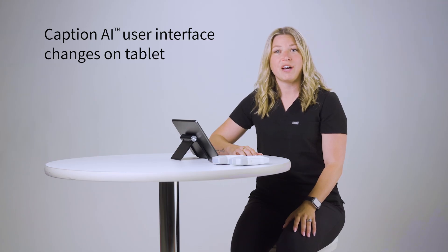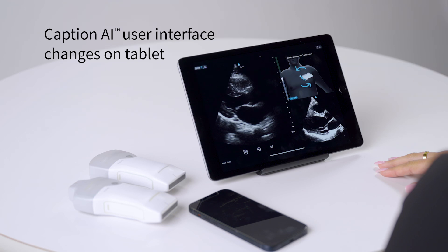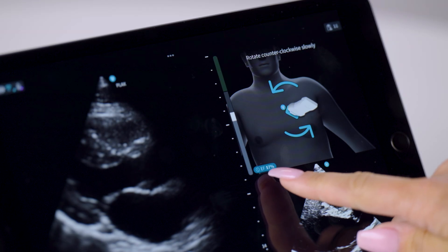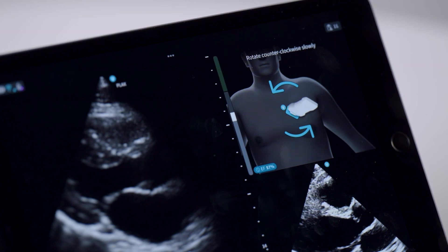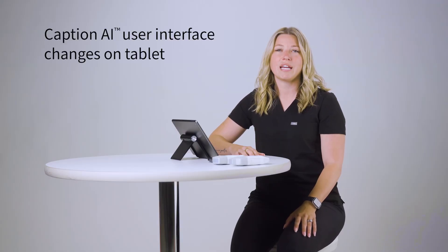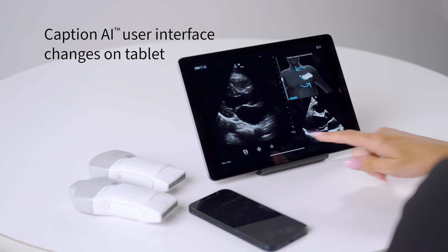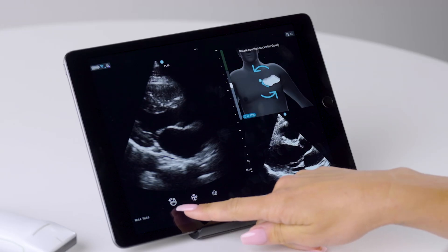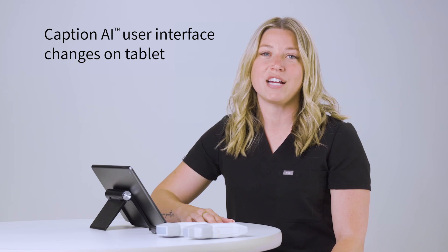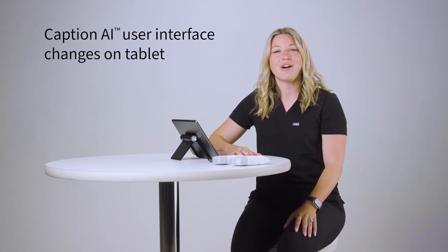Also, the EF value has been moved. We wanted to make sure that everything is close in view, so you can now find the estimates here. Simply tap it to view the EF report. Additionally, when it's difficult to get an auto capture using your quality meter, Save Best Clip is a great option. The software selects and keeps the best clip of your scan session for that view — it's a great existing feature now with a new icon.